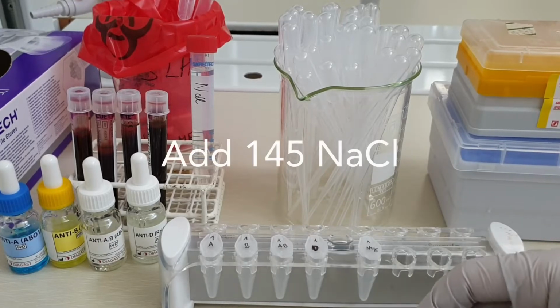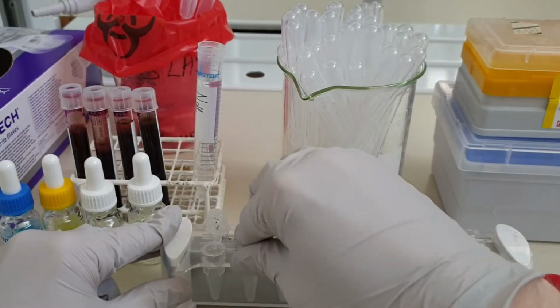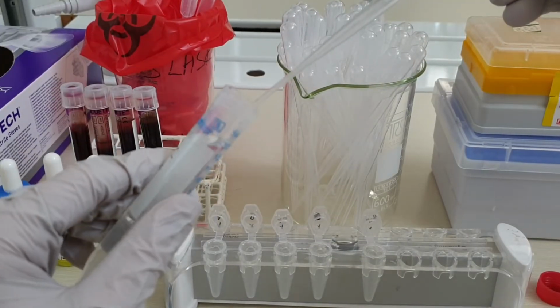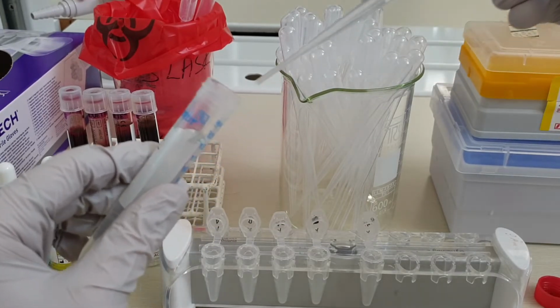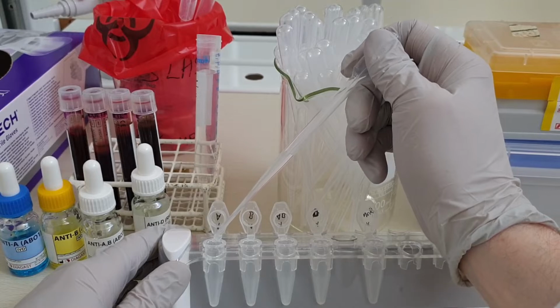Once we've labeled the tubes, we will dilute the blood in sodium chloride. So I will add a few drops of 145 millimolar sodium chloride first. It's important that it's 145 millimolar, since that is the full salt concentration. If the salt concentration is too far off, it will lead to an osmotic shock and burst the cells. You could use a real pipette to add the exact volumes, but this is a qualitative analysis and it'll work just the same using these droppers.